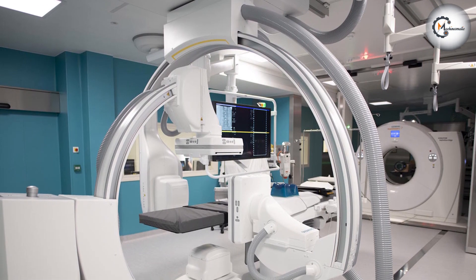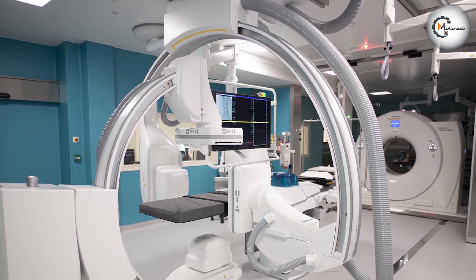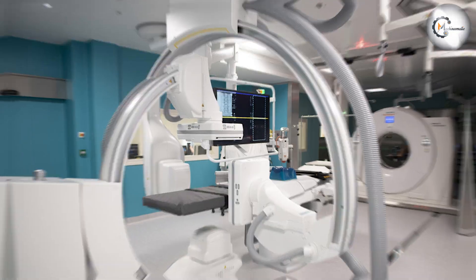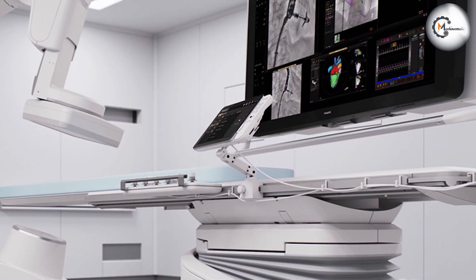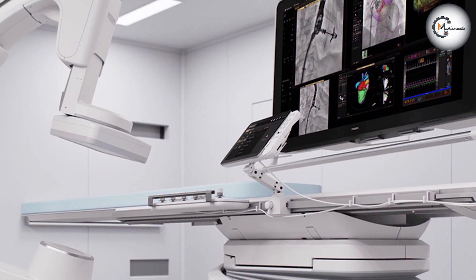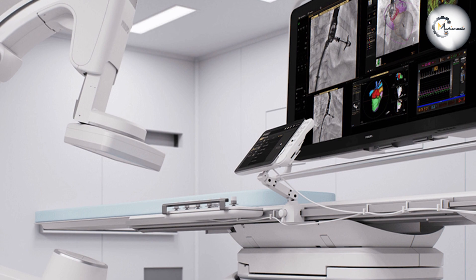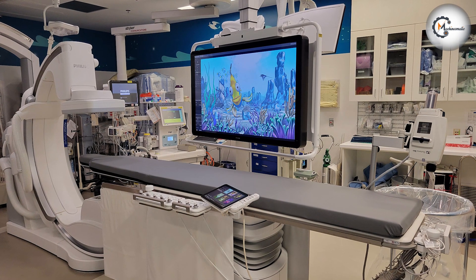The images produced by the angiogram machine are very detailed, and they can help doctors to diagnose a variety of heart conditions, such as coronary artery disease, heart valve problems, and congenital heart defects.